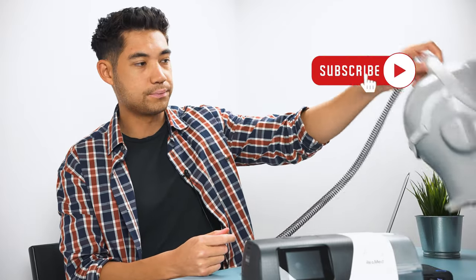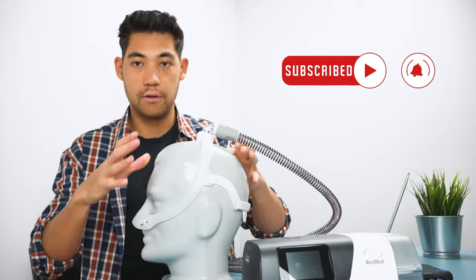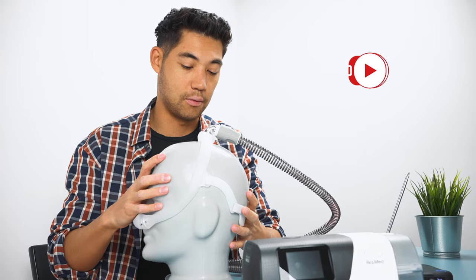So how do we get a good mask seal? The first thing we want to look at is your mask itself. So here we have a Dreamwear nasal cradle mask here, very good mask. One of my top favorite masks.